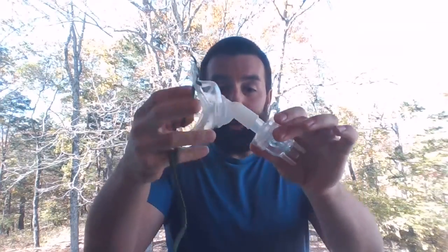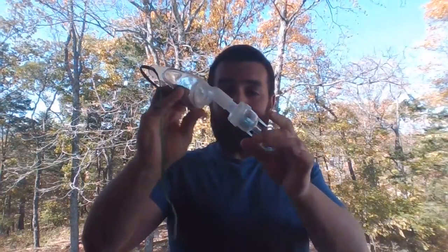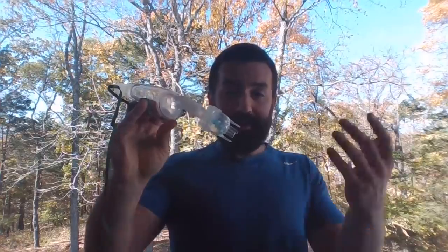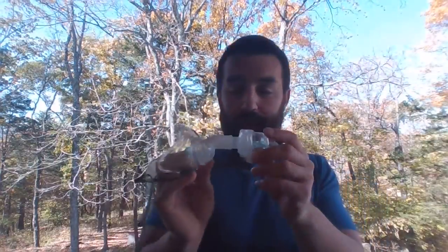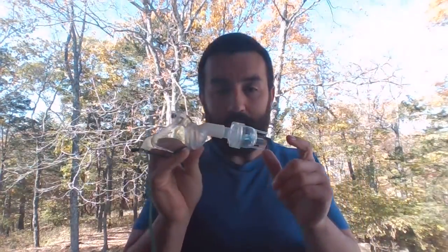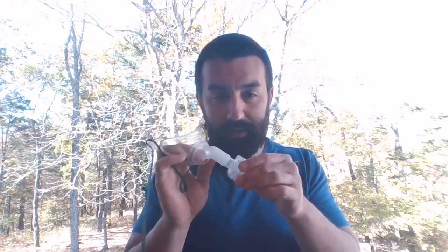A lot of your trach patients aren't going to be able to sit all the way upright. It hooks on like this, but your patient isn't going to get any medication. It's going to start sputtering and not giving a constant aerosol, and be done as soon as you start it. You'd have to have that patient leaning all the way forward and prone to make this work. So we need something in order to get this thing to sit a little bit flat. It hooks up like this, but don't do this. This is wrong.